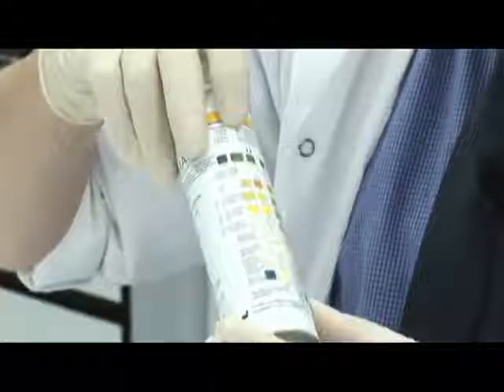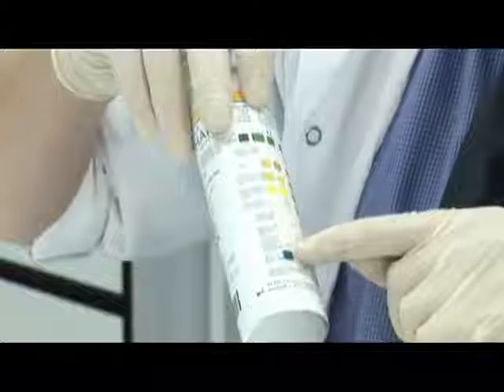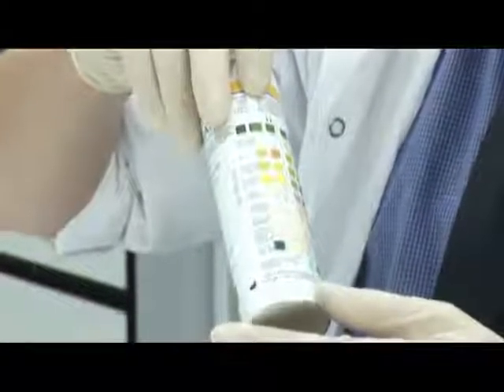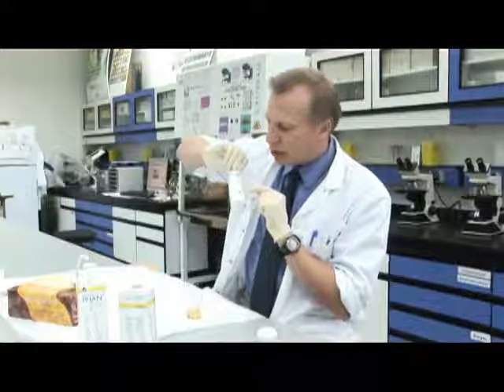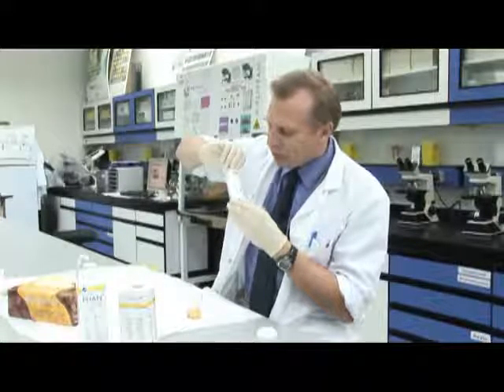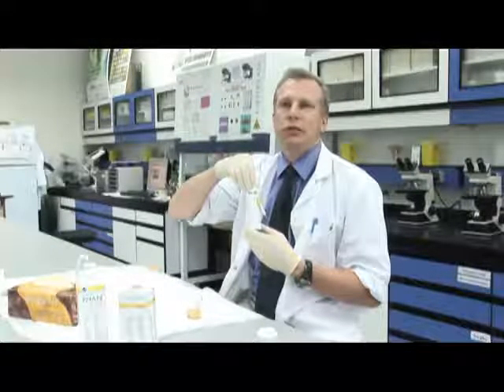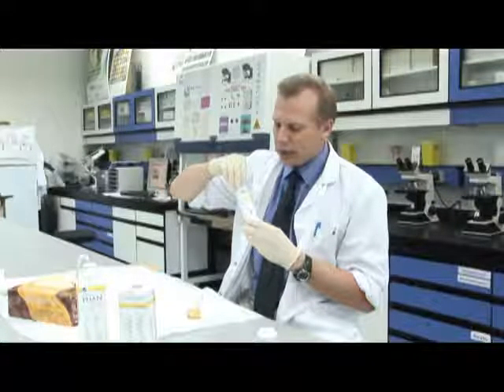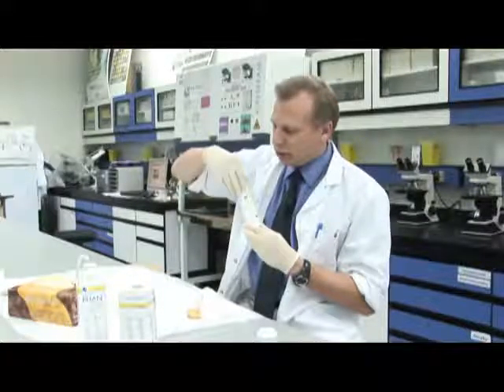Looking at the other squares, I think everything else is normal. That's a nice green, that's pale. That's a normal pH for urine. Glucose is normal, ketones are normal, and we have other tests, urobilinogen and bilirubin, which are used for liver function. And leukocytes are normal. So in this case, this person has some bleeding into the urine, but they don't seem to have infection or diabetes. You might do some more tests on them to see where the bleeding is coming from, but it just gives an initial indication.